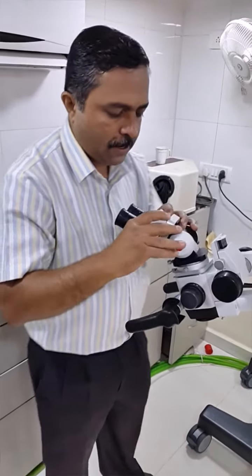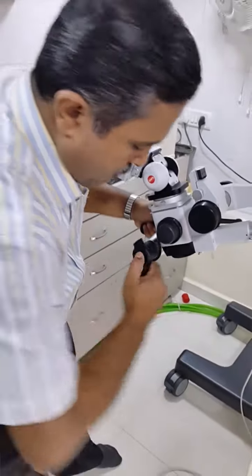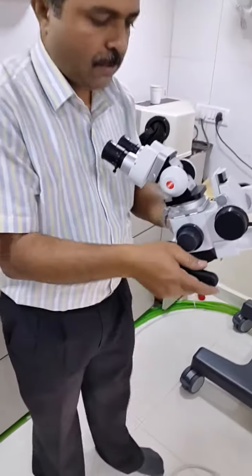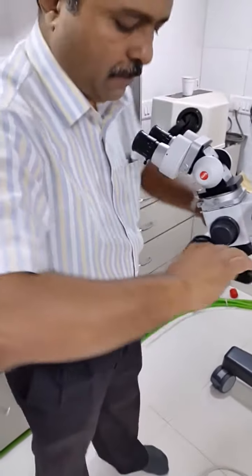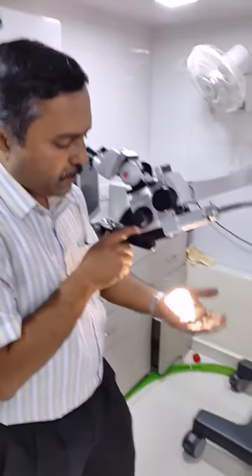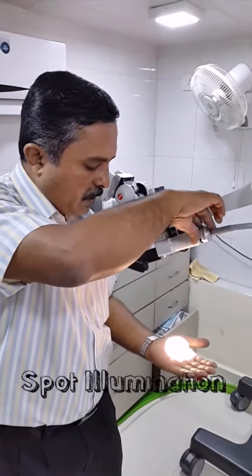During lateral positioning at the right side and left side, there is a handle — you have to pull this handle. Without removing the caps, we can do this because we have this flexible arrangement. And as a last feature, here is a spot illumination reduction with the help of this.